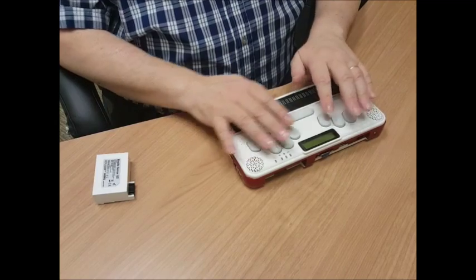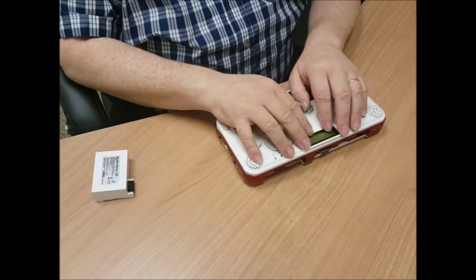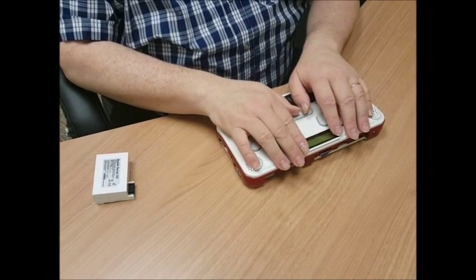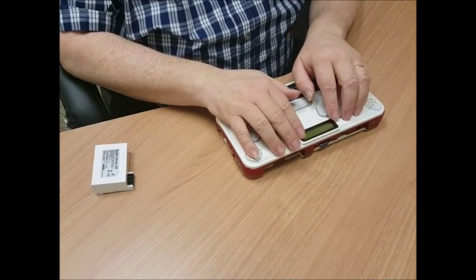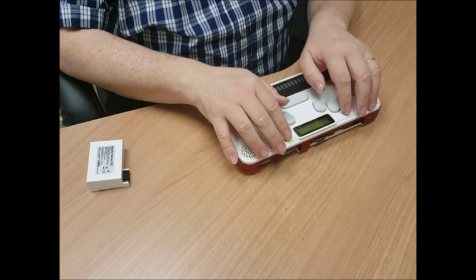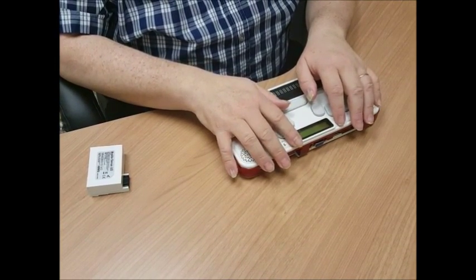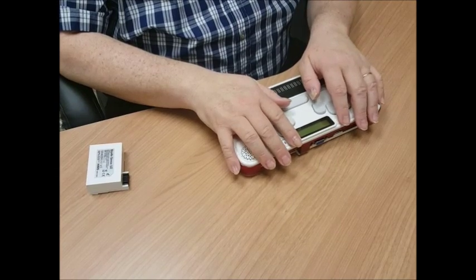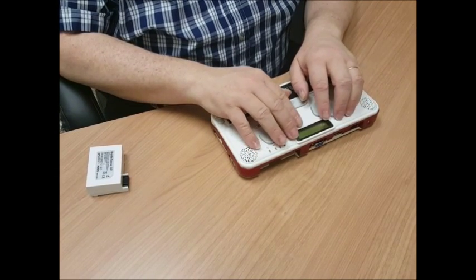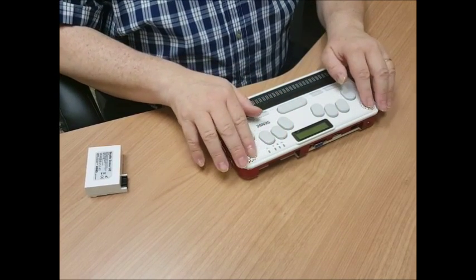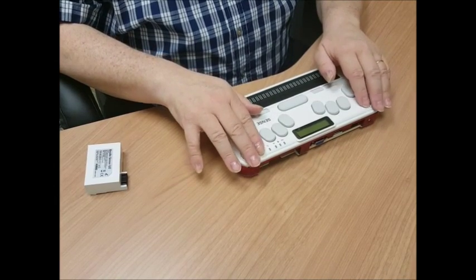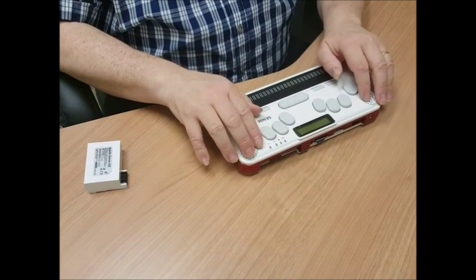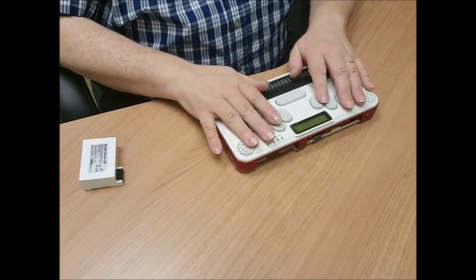So then if I go back up to the very top in the middle of the BrailleSense U2 is an LCD display that has a little protective covering on it right now that you would peel off once you got your unit. And then on the top right corners of the top panel of the BrailleSense are the stereo speakers, one on each side.